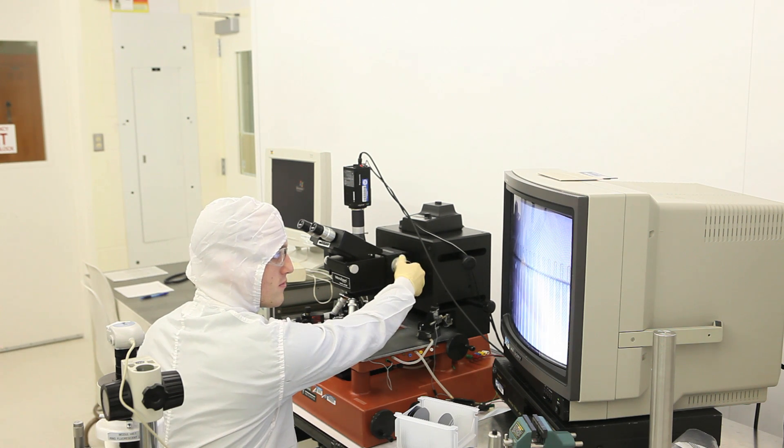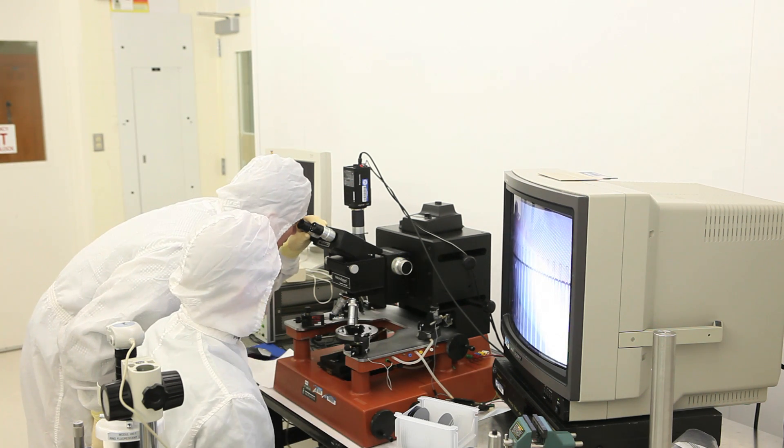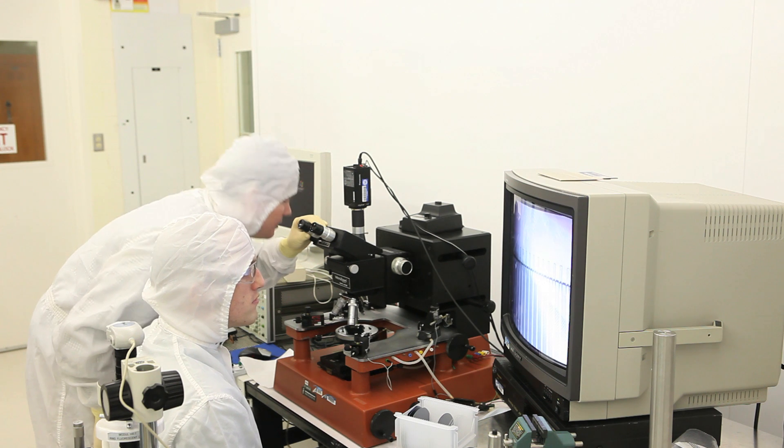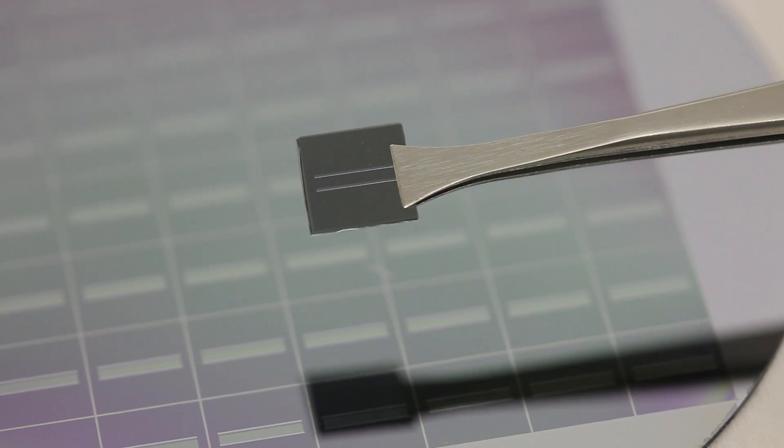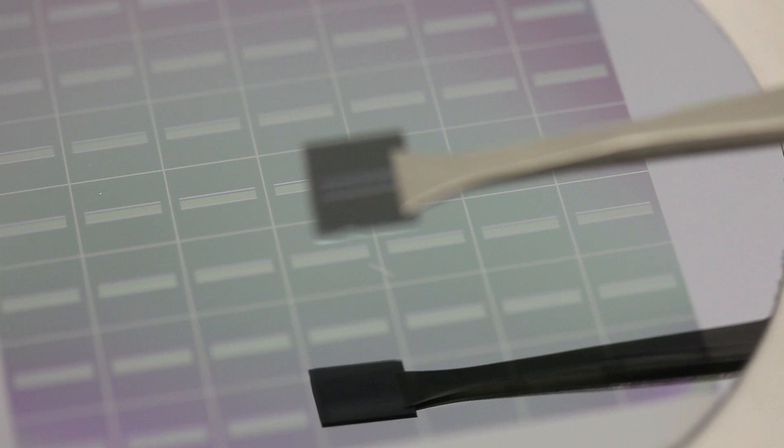So we're trying to create something small on a chip that's cheap and that can do the diagnosis very quickly, within minutes, so that it can be done locally, on site, and cost effectively.